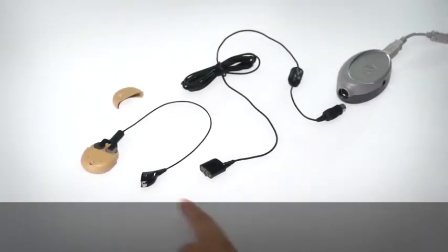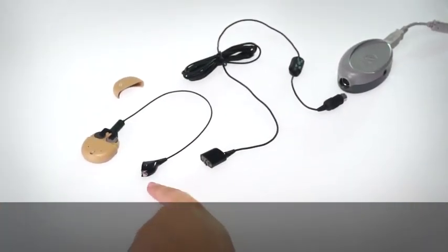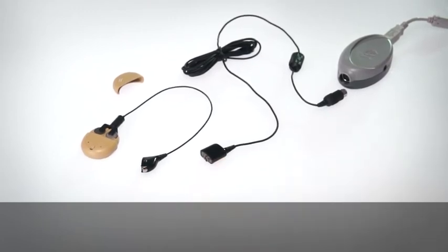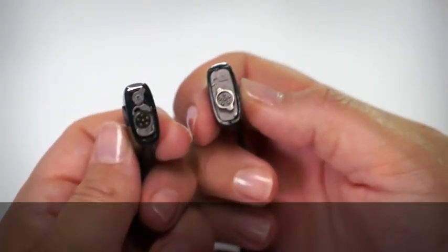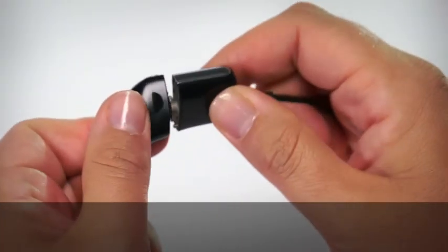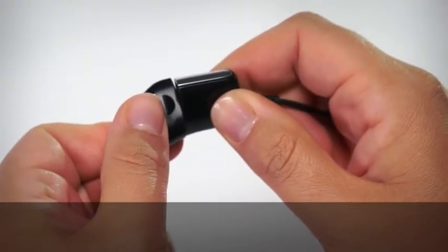Connect the other end into the programming cable. Align the adapter modules. Twist the modules together to attach the parts.